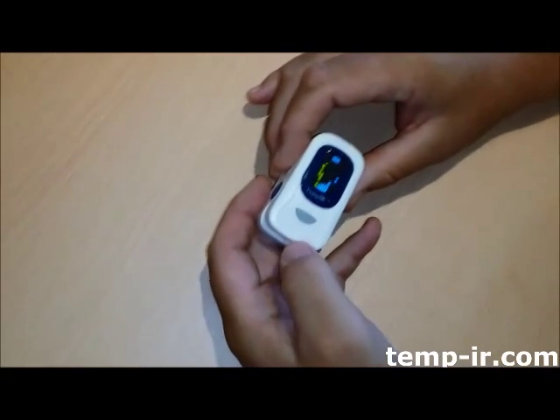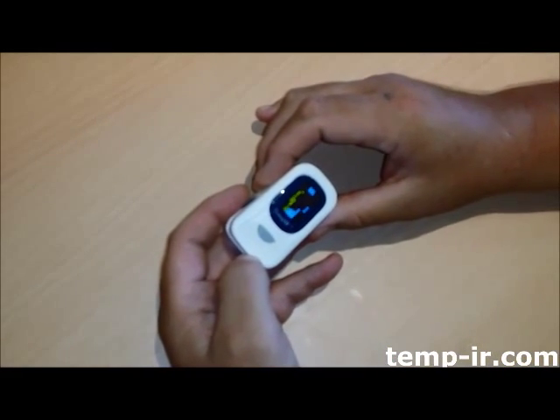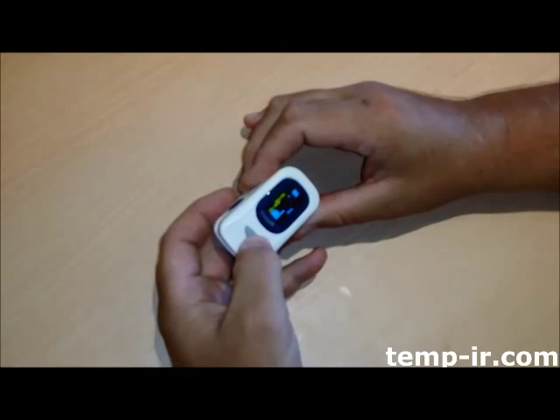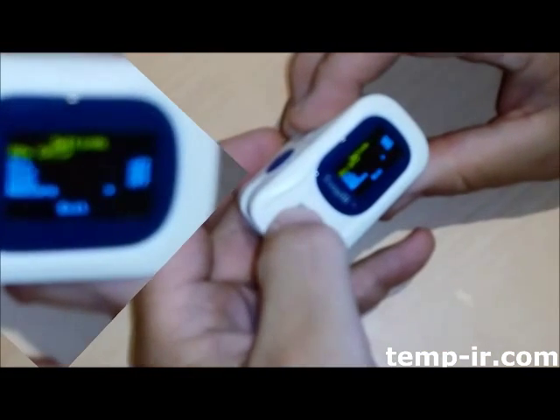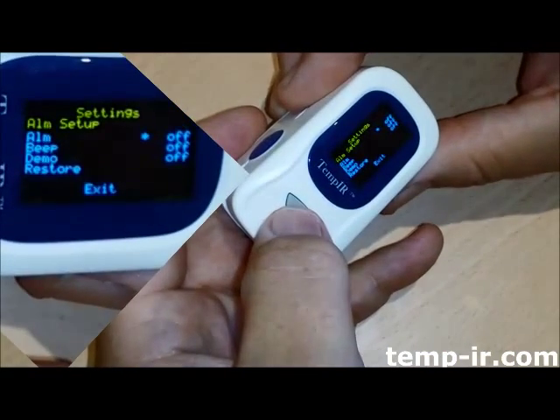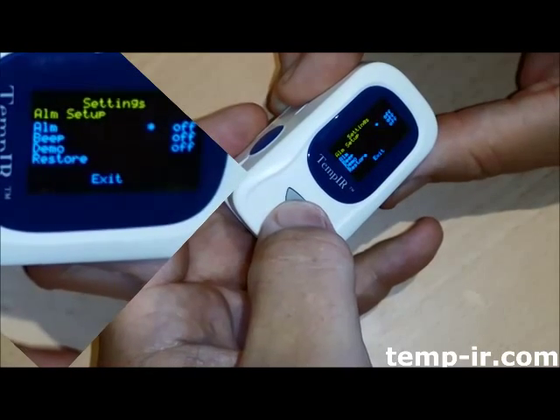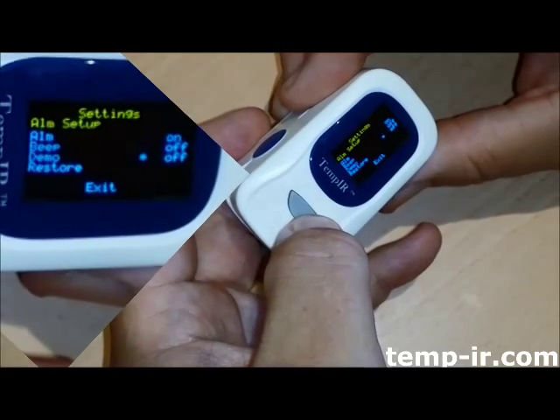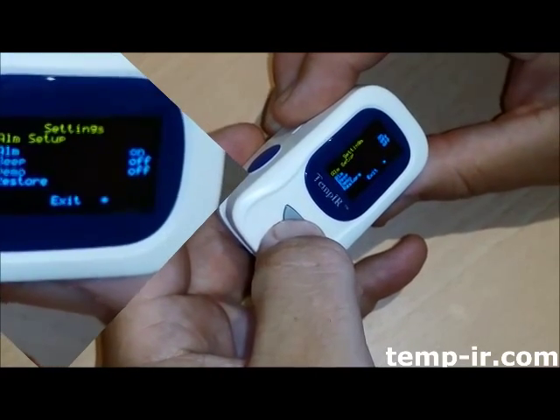Step 2: With one long press on the button you can toggle through the menu screens. There are two options — one turns the alarm on and off, the other enables you to adjust the alarm levels for SPO2 and pulse levels. You can simply turn the alarm on and off by pressing the button and then choosing exit from the menu screen.